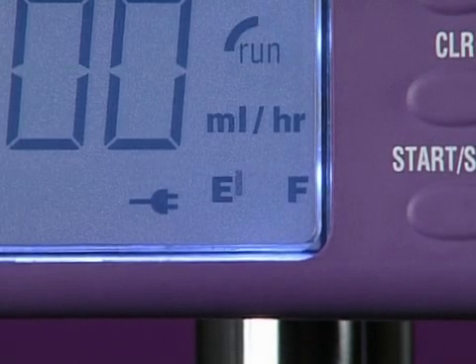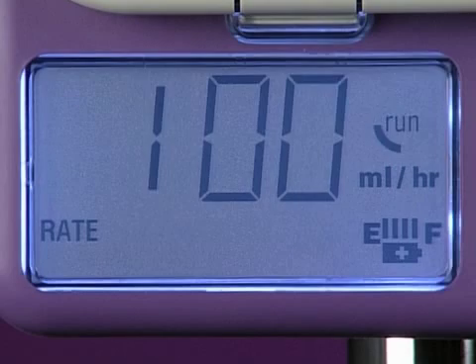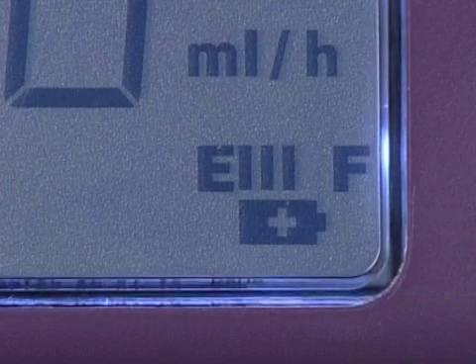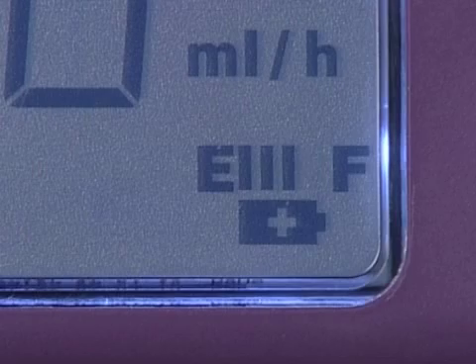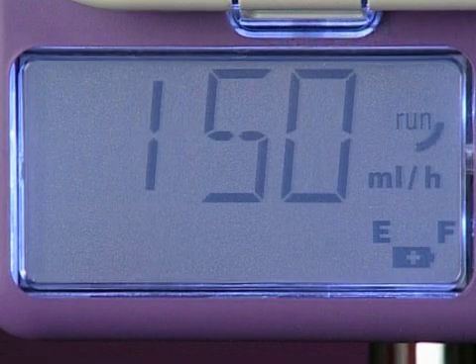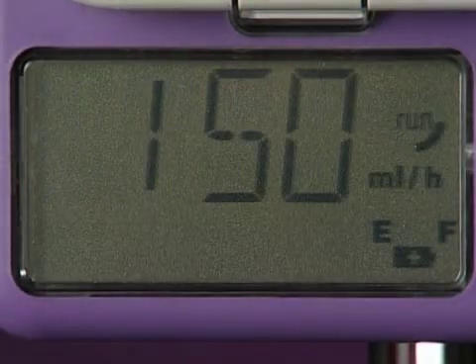When running on battery power, the battery level symbol appears. The battery will normally last 24 hours when running a continuous feed at 125 milliliters per hour. The number of bars that are visible denotes the status of the battery. Each bar represents about six hours of battery life at an average flow rate. The battery symbol will begin to flash when there's one hour of battery life remaining. In addition, the pump will beep every three seconds.